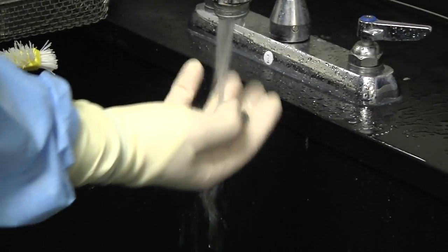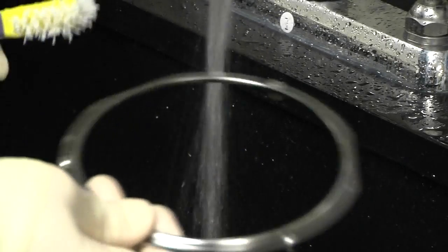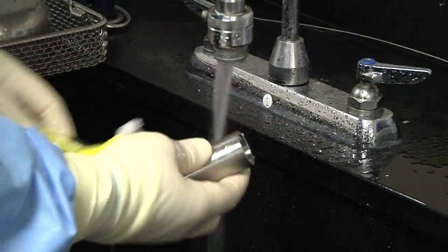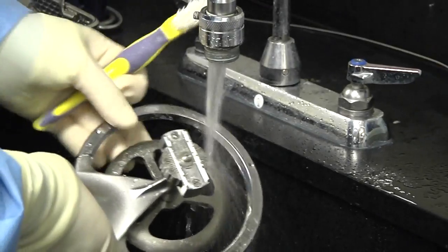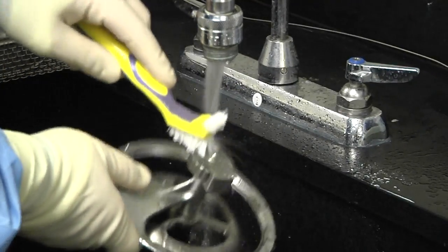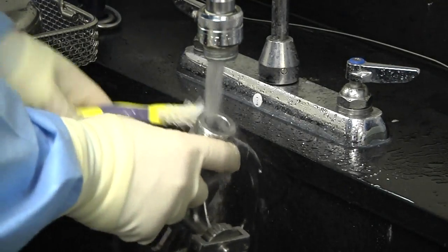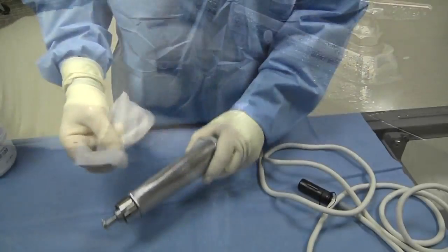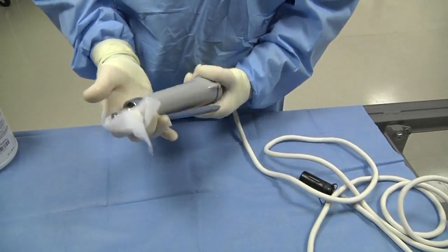Using a soft brush, scrub all parts with cleaning solution, with the exception of the power supply, and rinse after the time suggested by solution manufacturer specifications. Rinse the head with tap water or alcohol. Wipe handpiece and cord with alcohol or disinfectant solution.